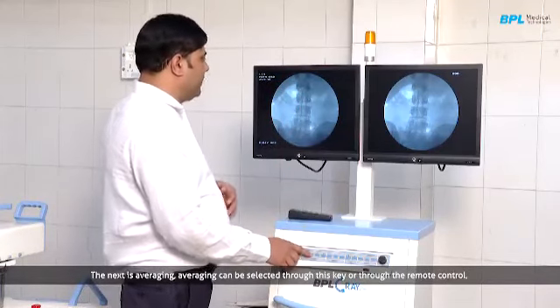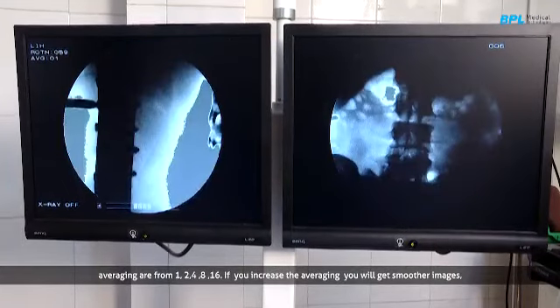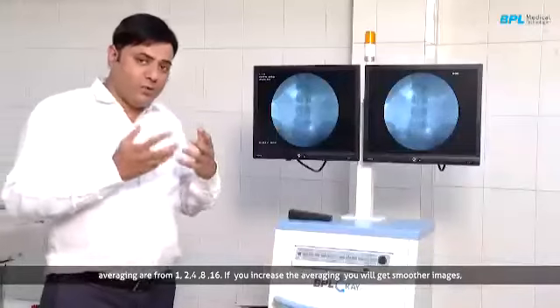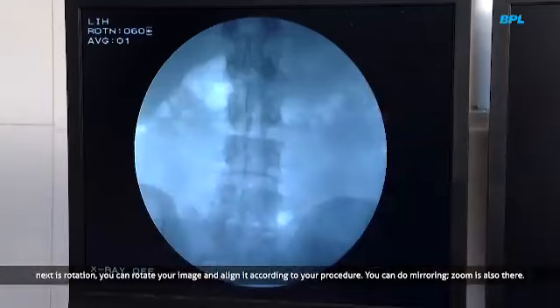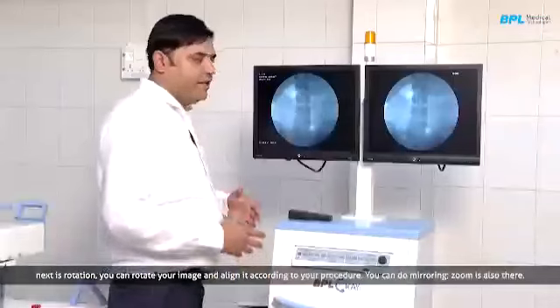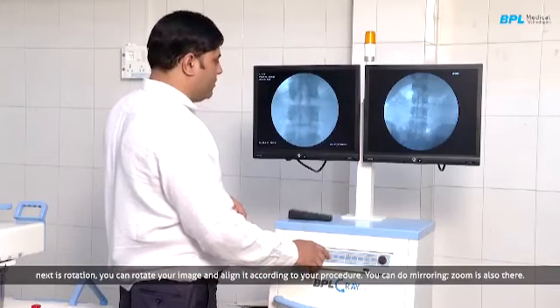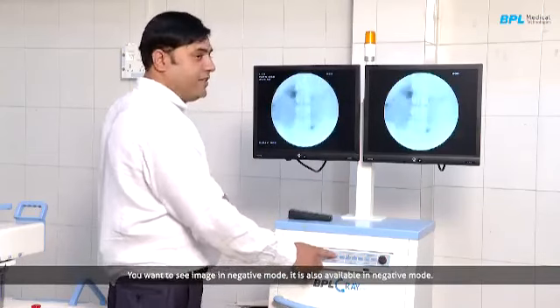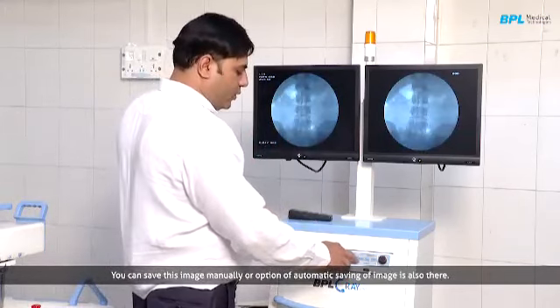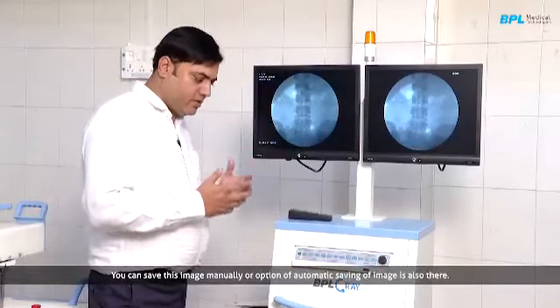The next is averaging. Averaging can be selected from this key or through the remote control. So averaging values are 1, 2, 4, 8 and 16. If you increase the averaging, you will get a smoother image. Next is rotation, so you can rotate your image and align it during the procedure, and you can do mirror. Zoom is also there. If you want to see the image in negative mode, now it is in negative mode, and you can save this image manually, or the option of automatically saving the image is also available.